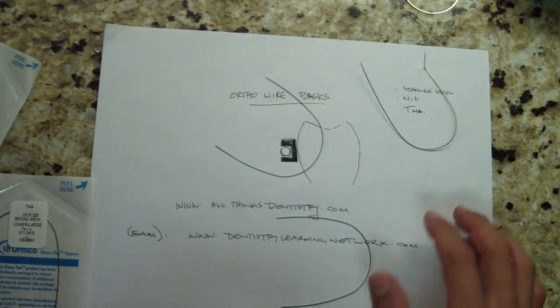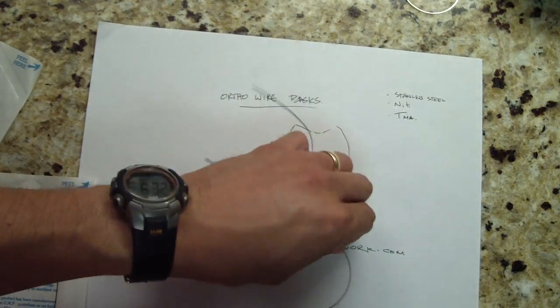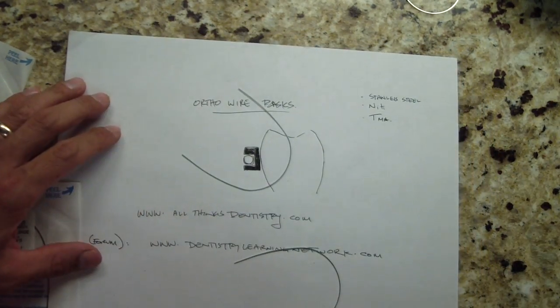That gives you an idea of the three different types of wires. There are many different kinds, but these are the big ones. Anyways, hope that helps. Cheers.